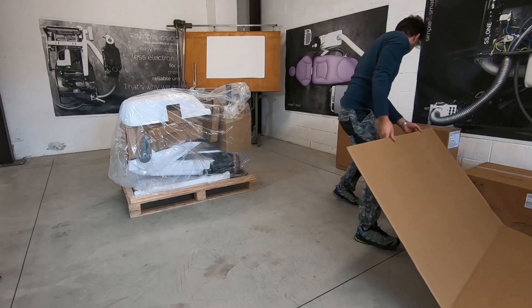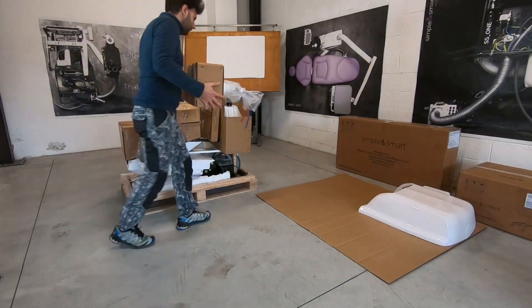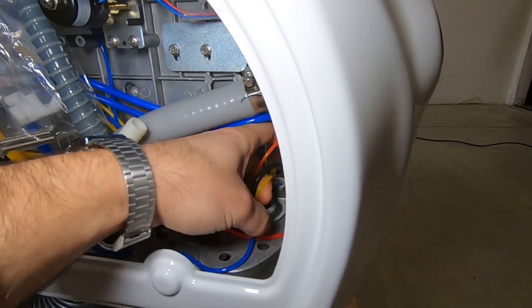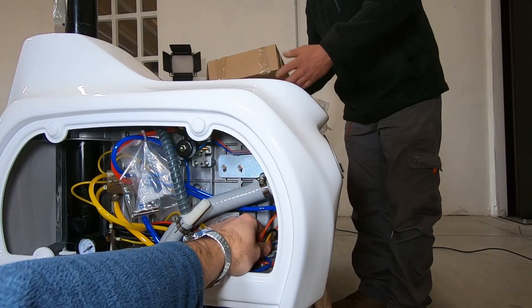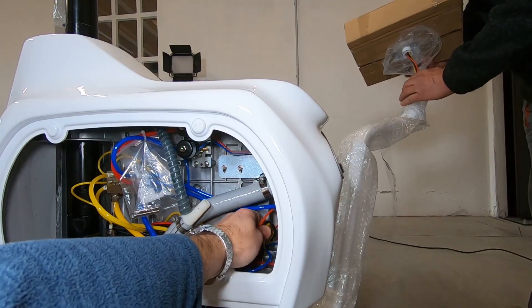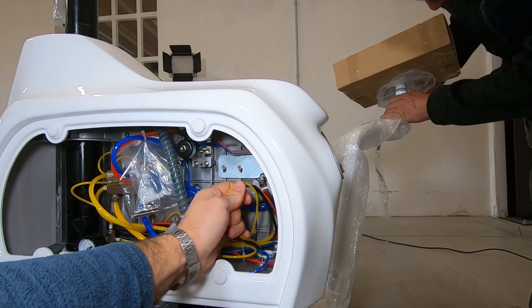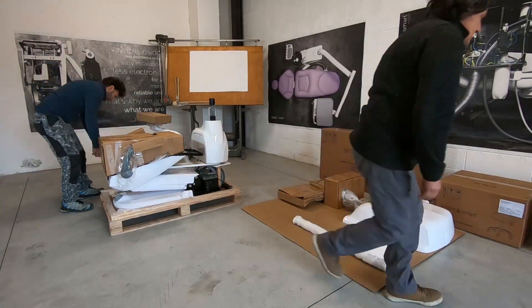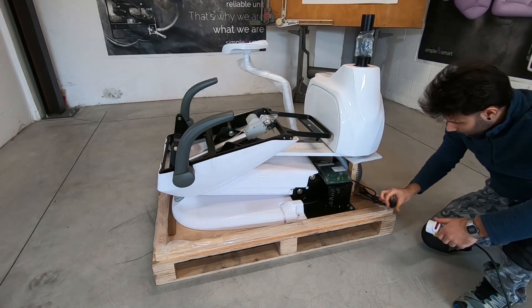Use something soft to rest the pieces of the dental unit on. Open the water unit and mount the assistant tray on its arm. Turn on the unit and raise the seat.